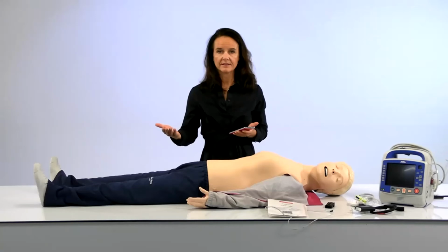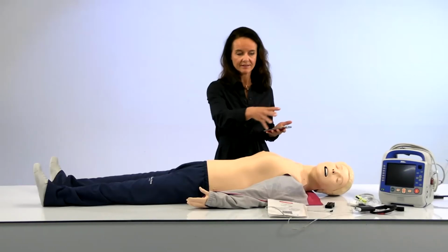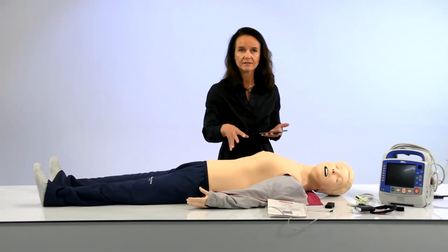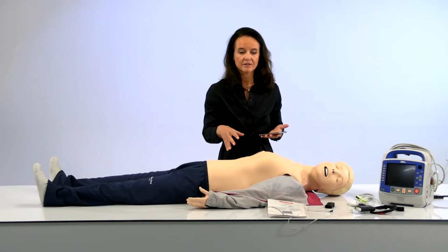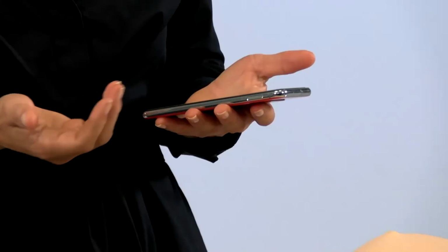So I want to probe you and go a little deeper on that. When you say integration with ShockLink, what does that mean as far as integrating further with our solutions? Yeah, it means that when you have a Team Reporter or a SimPad Skill Reporter that integrates with ShockLink, you will have some benefits from using this setup. All the individual components here, they speak to each other. So you get the best experience and everything is controlled from the palm of your hand.